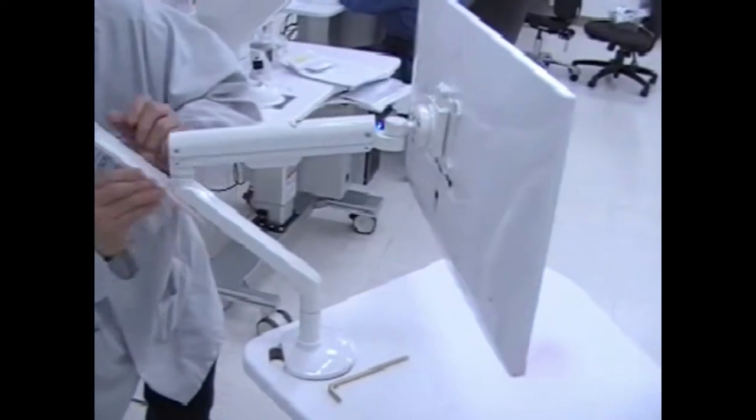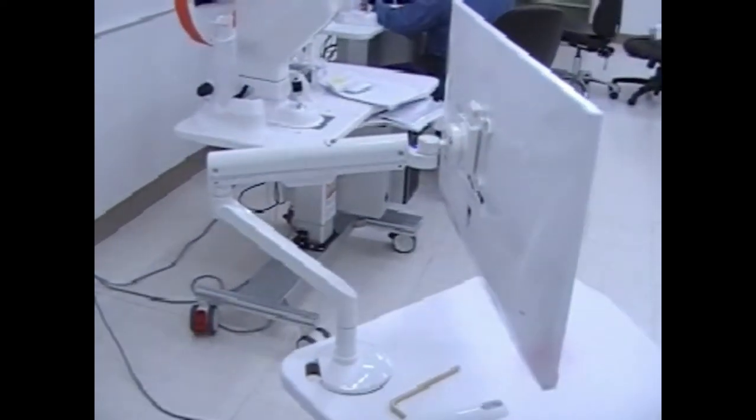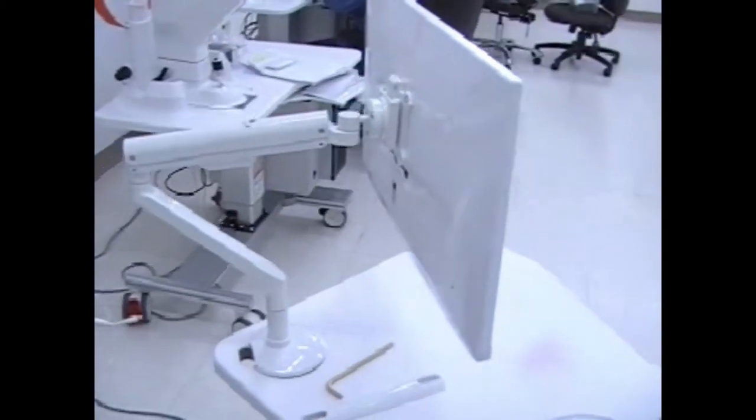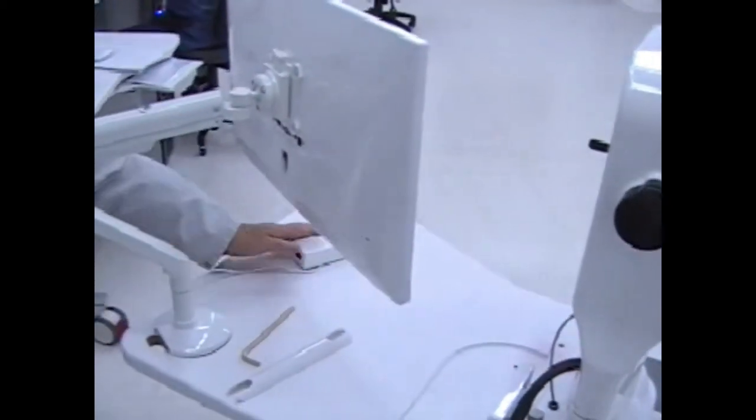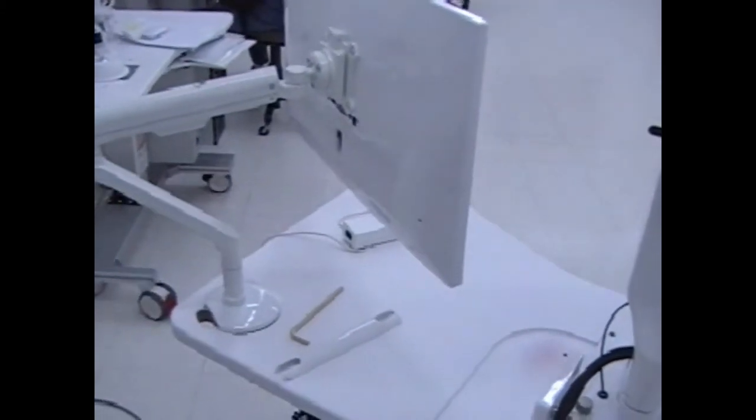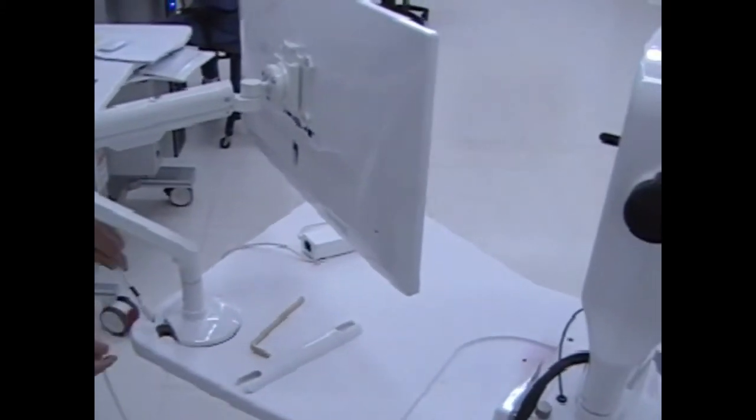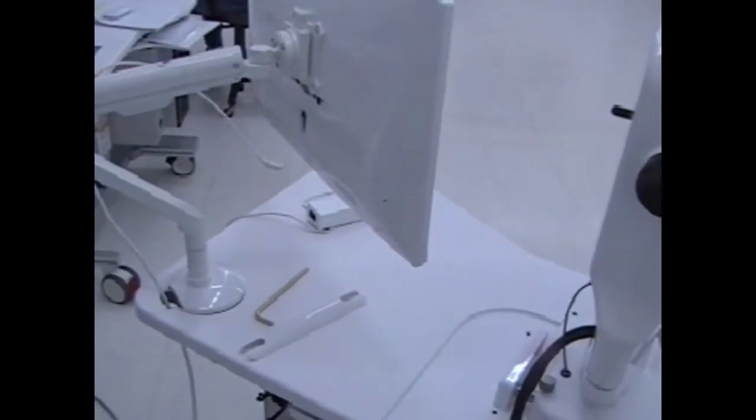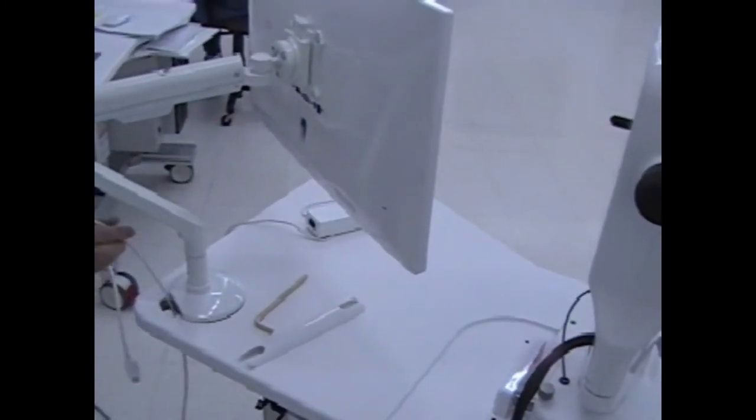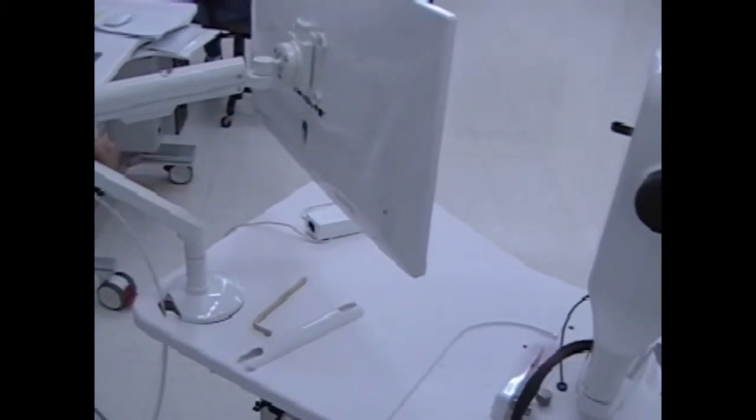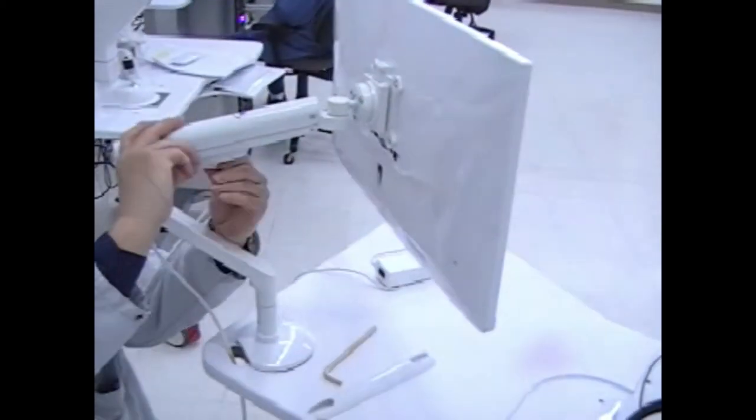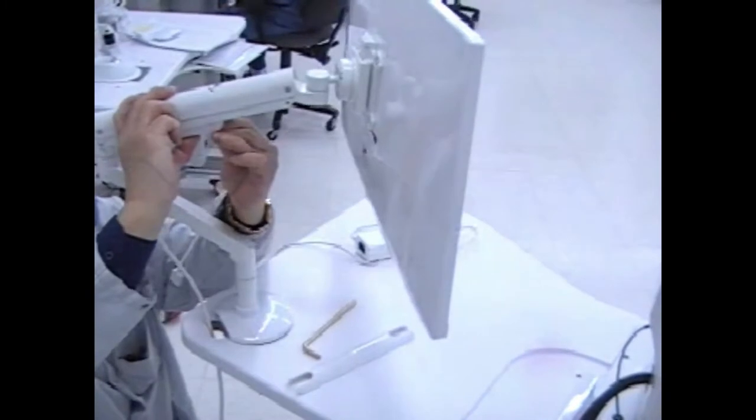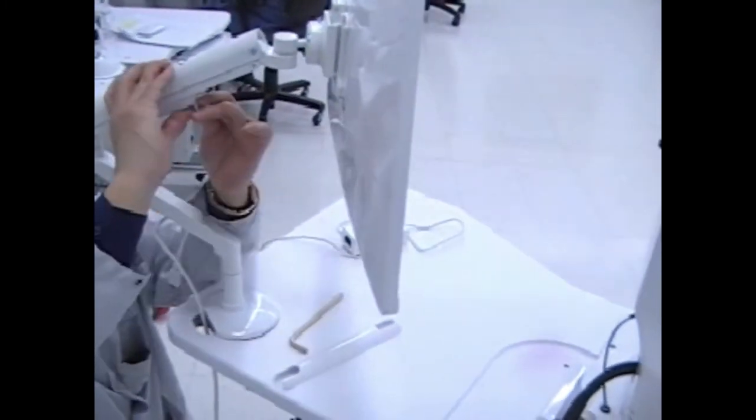Next we want to remove the cable cover and attach the cables. There's a power cable and HDMI. Snap the cable into the upper groove, making sure that there's sufficient cable to allow the monitor screen to flex and turn.